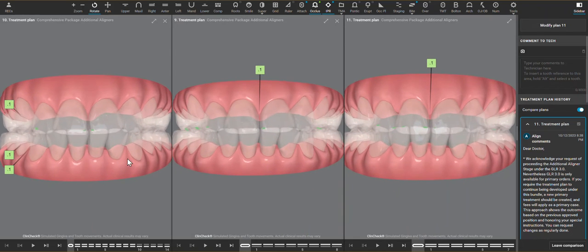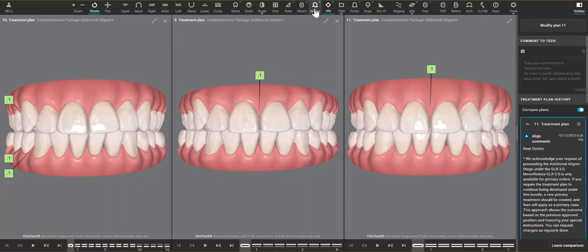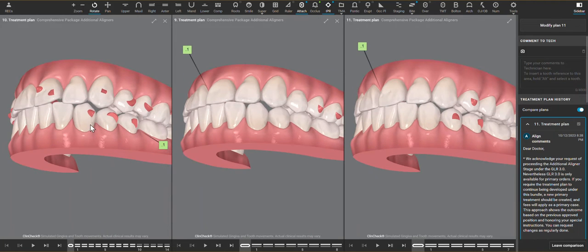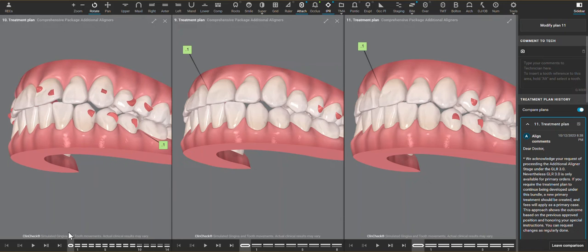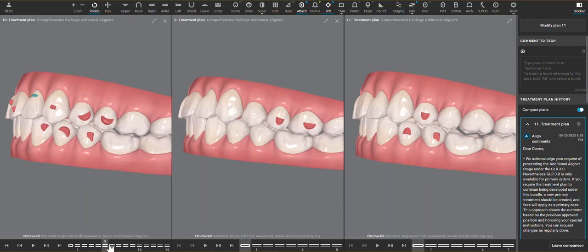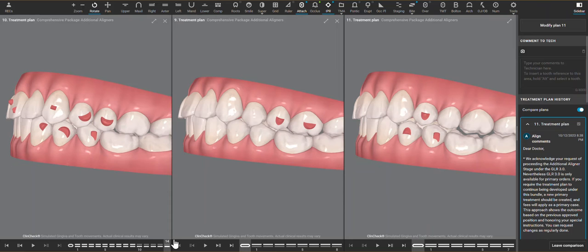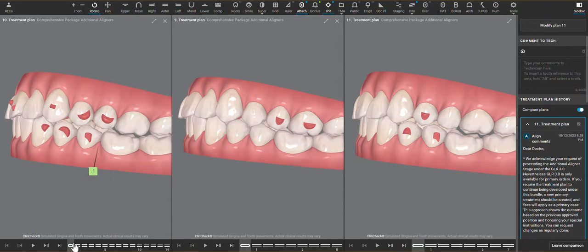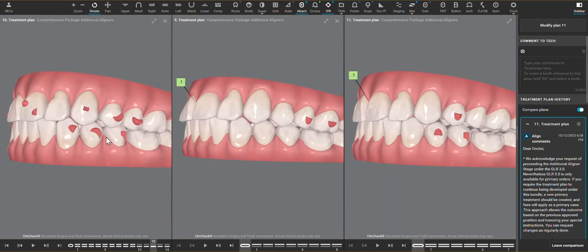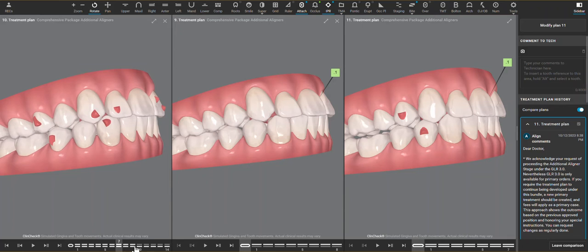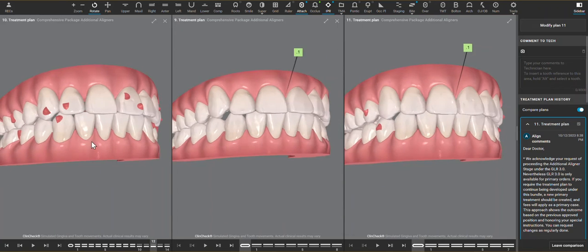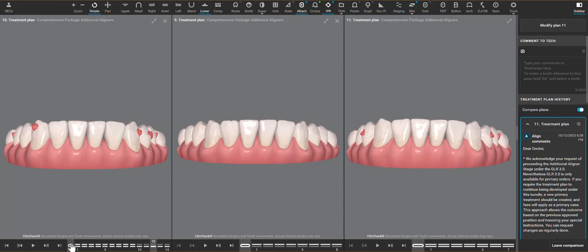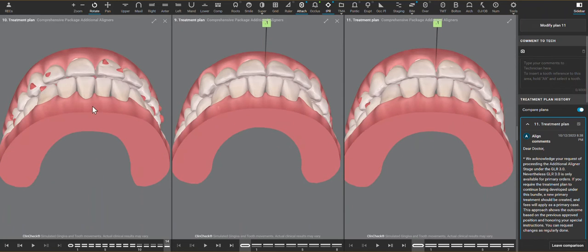From here there was just a lot of movements that weren't totally going to happen. These molar movements of the lower molars being extruded without attachments is unfortunately something that gets planned in from the Align software that's entirely not predictable. A lot of rotation that didn't need to happen with this premolar in the first place, and just a lot of distracting movements in the posterior without much retention of the aligners on the teeth.